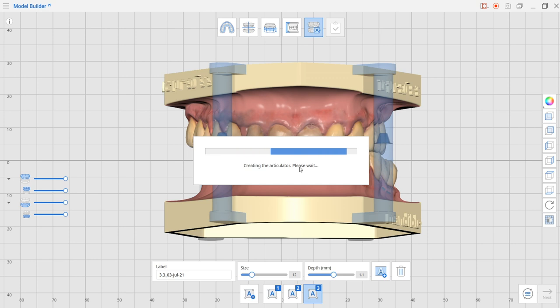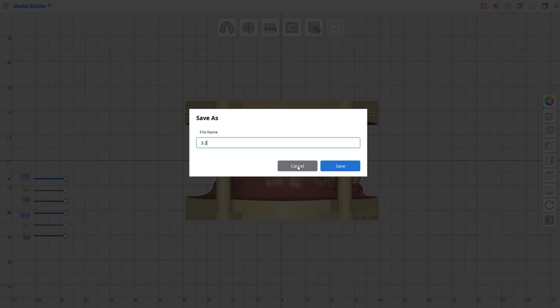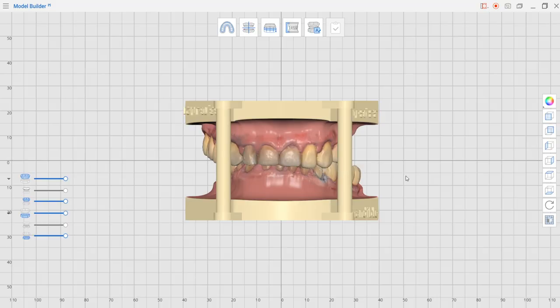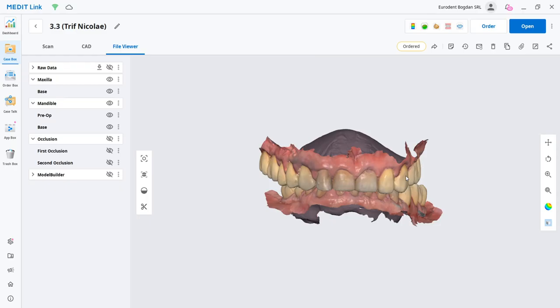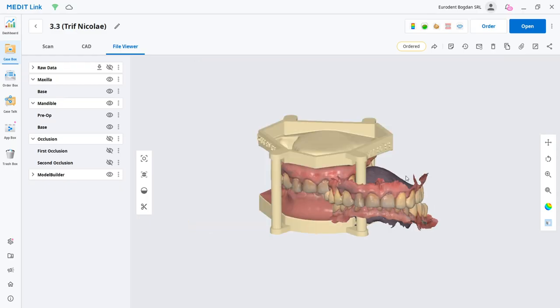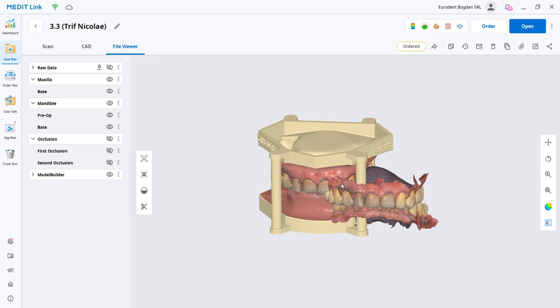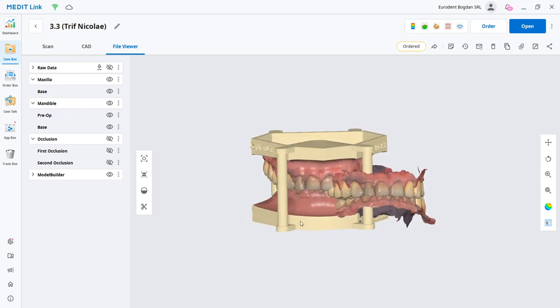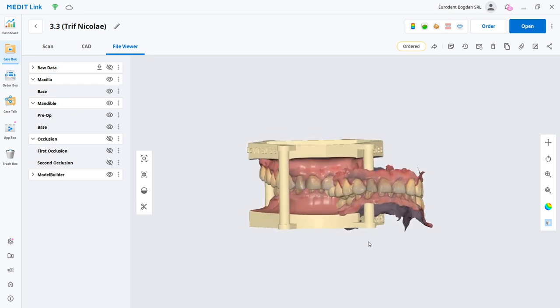Text is going in first and now the attachments as well. Be attentive to the attachments because if you drag them too much outside, you're going to have very big models that are difficult to print on the smaller printers. The last part is going to give us the possibility to save the model with a name, and now everything is going to get in Medit Link. This part of the program is auto-saved and closed automatically.